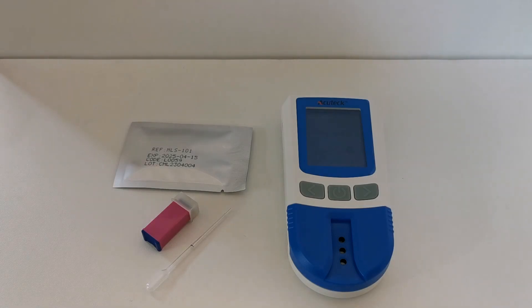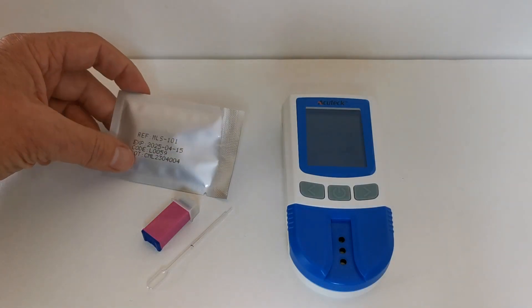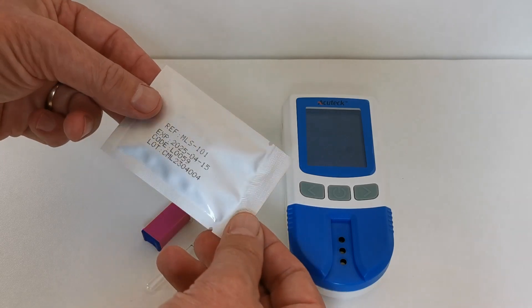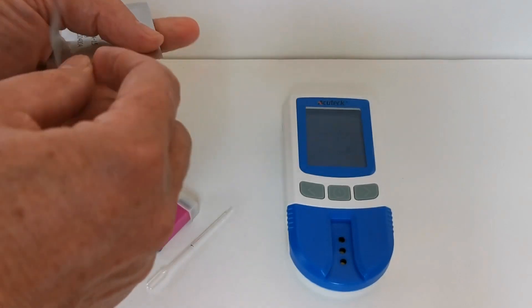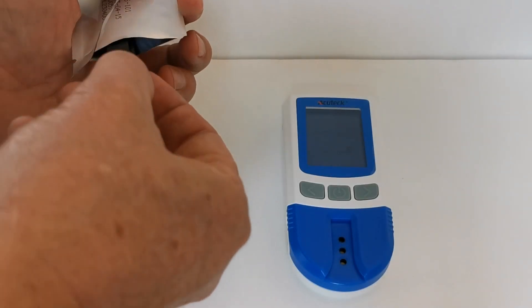We're now going to demonstrate how to perform a cholesterol test using one of the cholesterol test devices. These are individually foil wrapped and should not be removed from their foil until just before you are ready to perform the test.